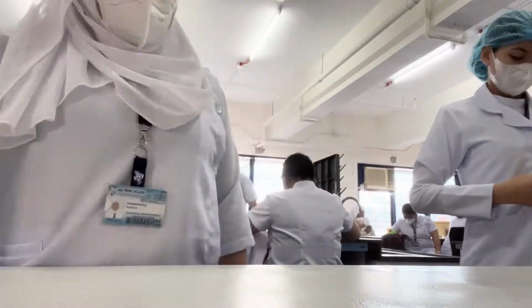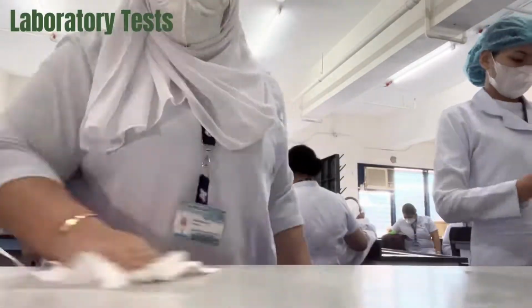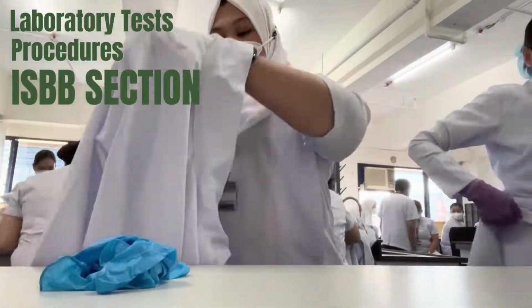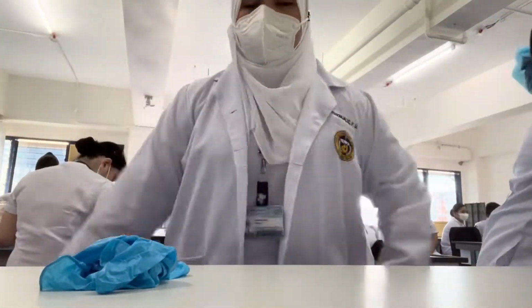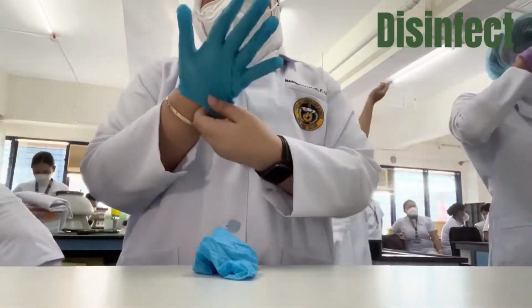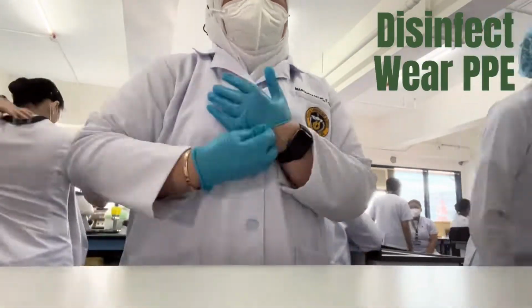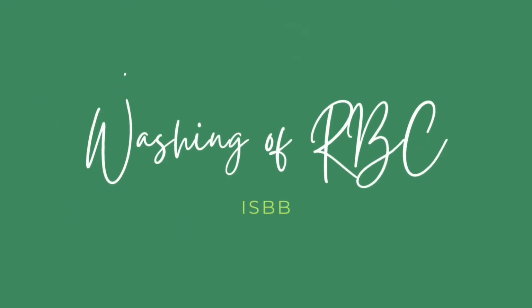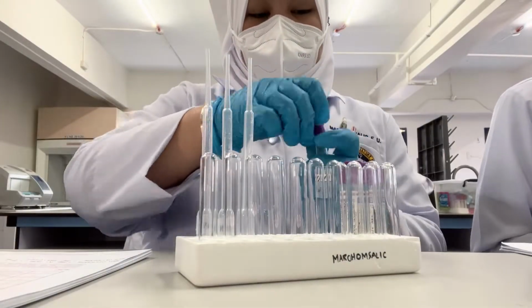In this video, I will be showing you different laboratory tests and procedures that are conducted in the ISBB section of the laboratory. The first thing to do in every laboratory activity is to disinfect the working space as well as wearing the proper PPE. First is washing of RBC. This is done to remove the unwanted plasma proteins including antibodies that might interfere with the reactions.